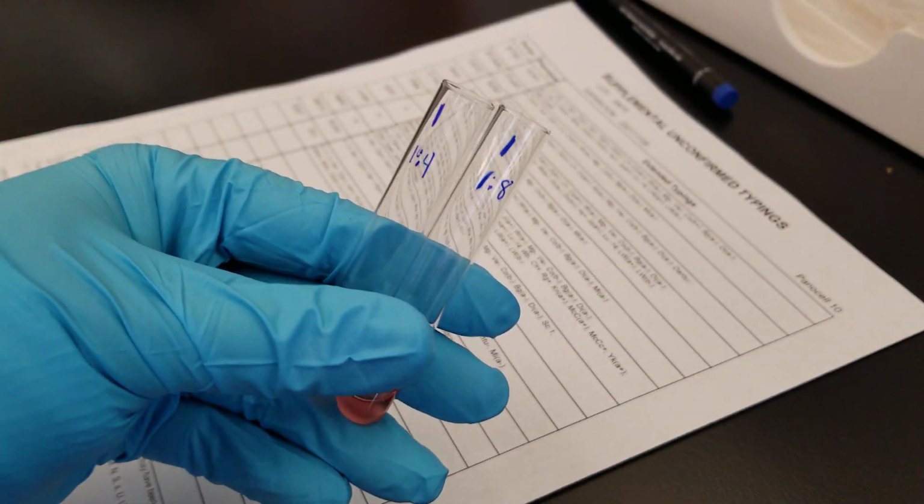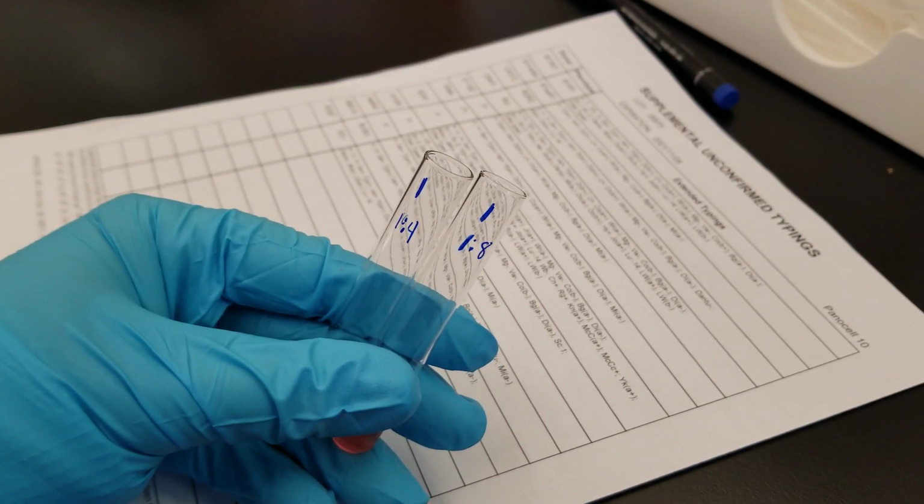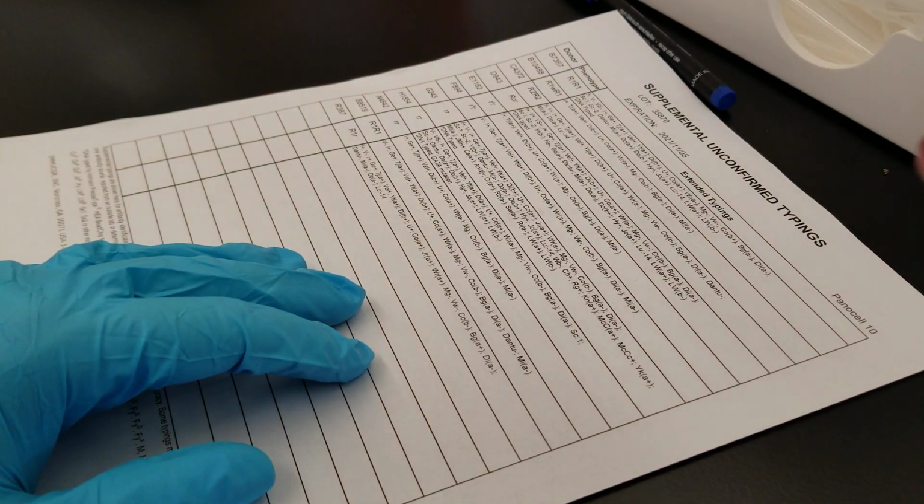Of course, they're going to always start out strong, right? But you have to keep making sure that if you keep agitating the tube, that they won't break up. So these two are weak. All right, so the rest of those should be doing the same. They look strong, and then you agitate the tubes and they get weak.